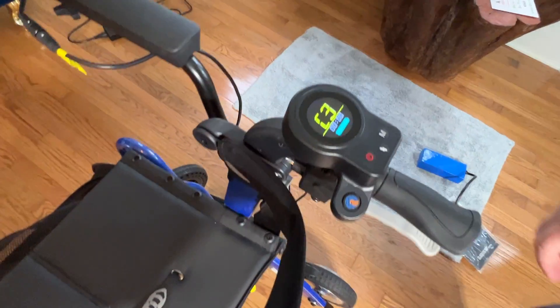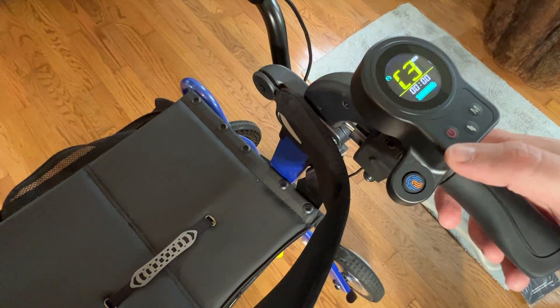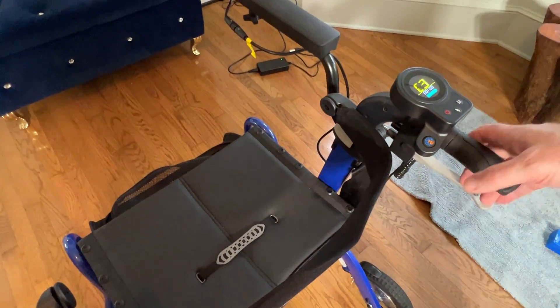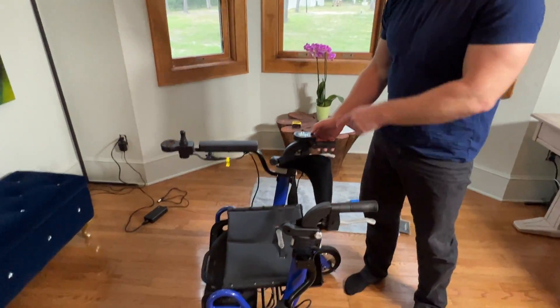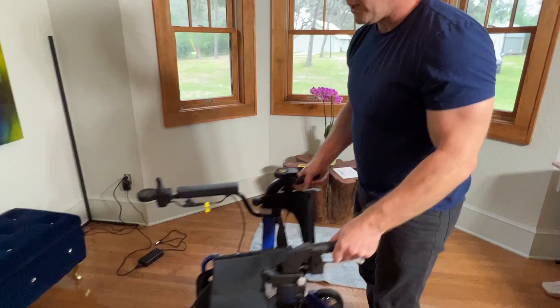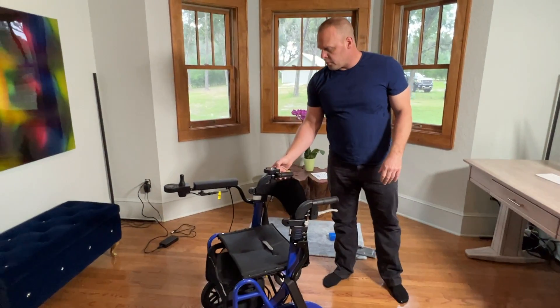I basically have the rear controller on. I have C1 through C3 — basically this is power, and C3 means I can reverse or put it in forward, so I can use that as a controller if I'm wheeling somebody behind this device. Or I can filter through manual — if I just see 01 through 03, that's just manual resistance, preventing me from going downhill and giving me stability. And of course if I fall on this device, it puts double E's and locks the device up. Super nice.